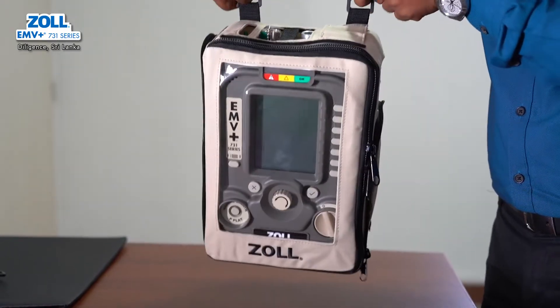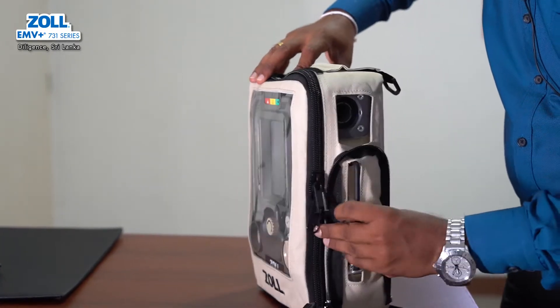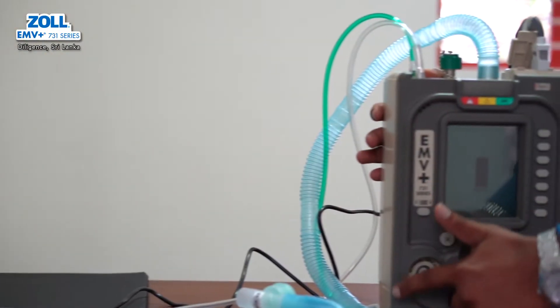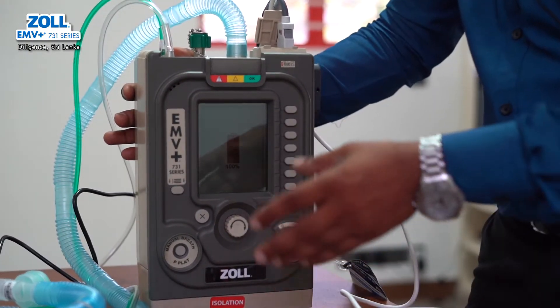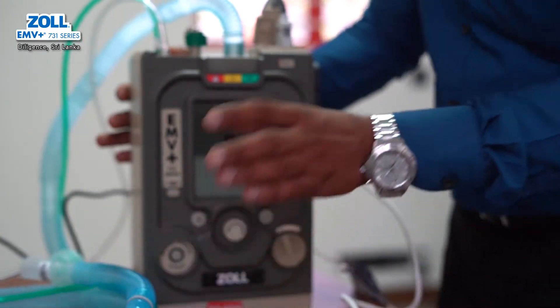There is a transport handle. There is no mask included that can be used for the BiPAP. It is important to use the machine properly. You can use the mask by placing it appropriately. It is important to use the BiPAP mask correctly.